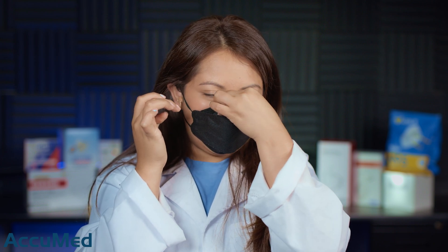With that being said, it doesn't have a significant smell. There's definitely a sort of chemical smell, but it's nothing too bad. The nose wire is not the best — a little flimsy — so I'm not really able to get a good seal. We're going to see how these test on our TSI machine, testing both the filtration efficiency and the pressure drop.